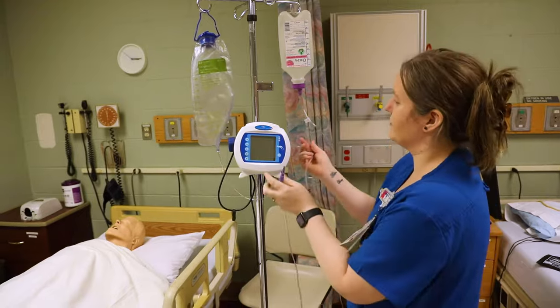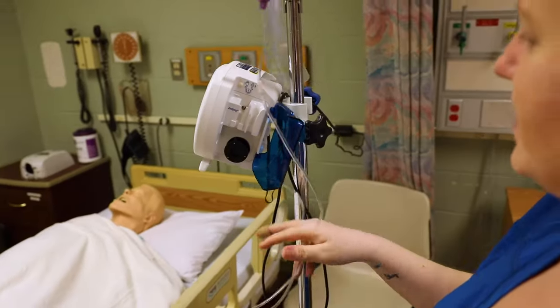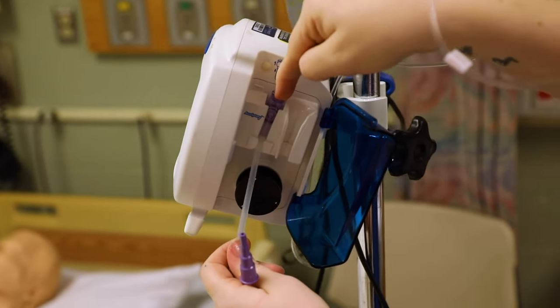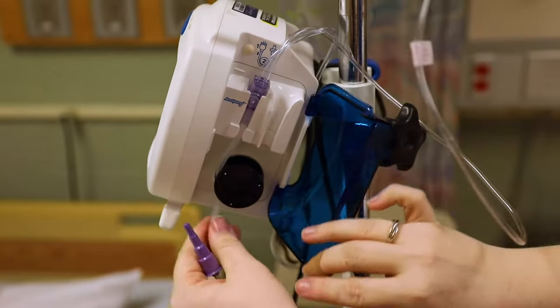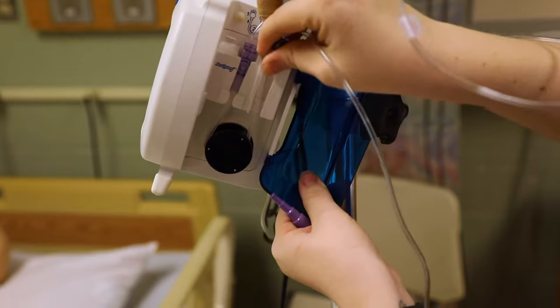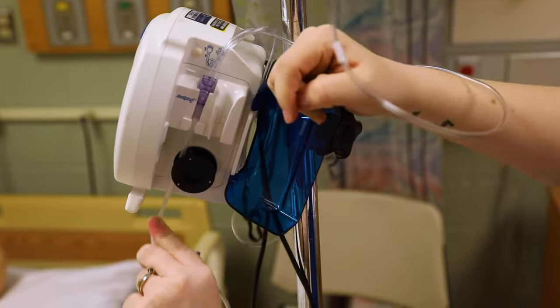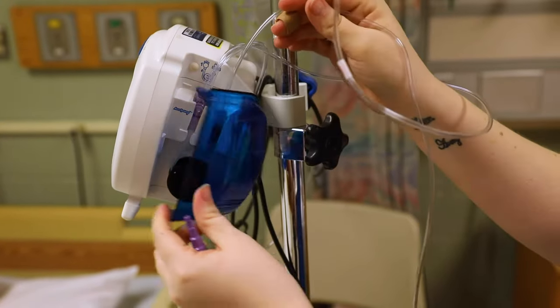Next you're going to need to prime this, so you want a trash can or to be near a sink. This is where it gets a little tricky if you haven't done it before. You want to hold this little shelf right here and put it into this part right here — you can see how it goes into that shelf. Then you pull this stretchy piece up — you're not going to break it — go underneath the black, pull it up, and release that little black cylinder into place. So: hold your shelf, slide it in, stretch this up, then release. Then close your door.